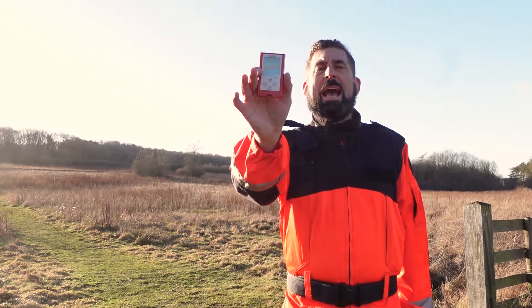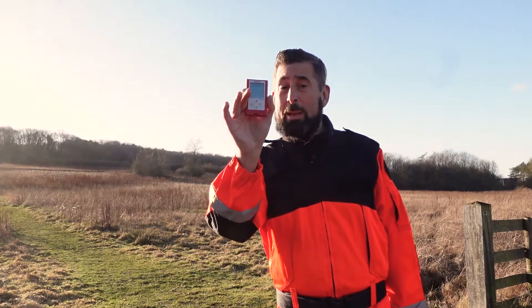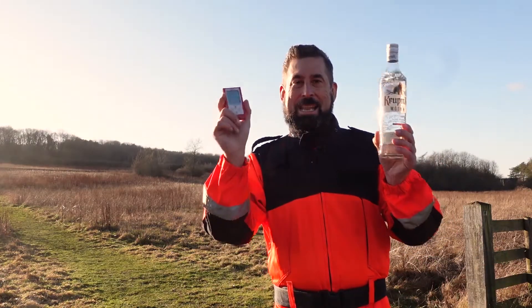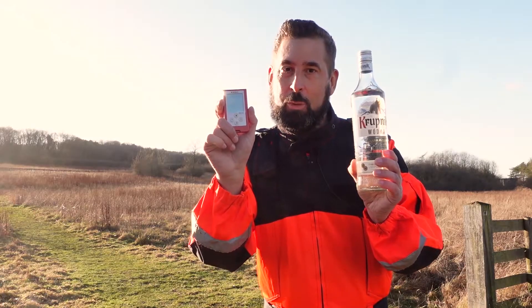The biometer which can check alcohol levels from your patient's capillary blood in less than 25 seconds is either the biggest joke or the biggest revelation in paramedicine. Let's find out, let's test it, and let's try not to get completely drunk. My name is Alex Hepner and this is Group Call.